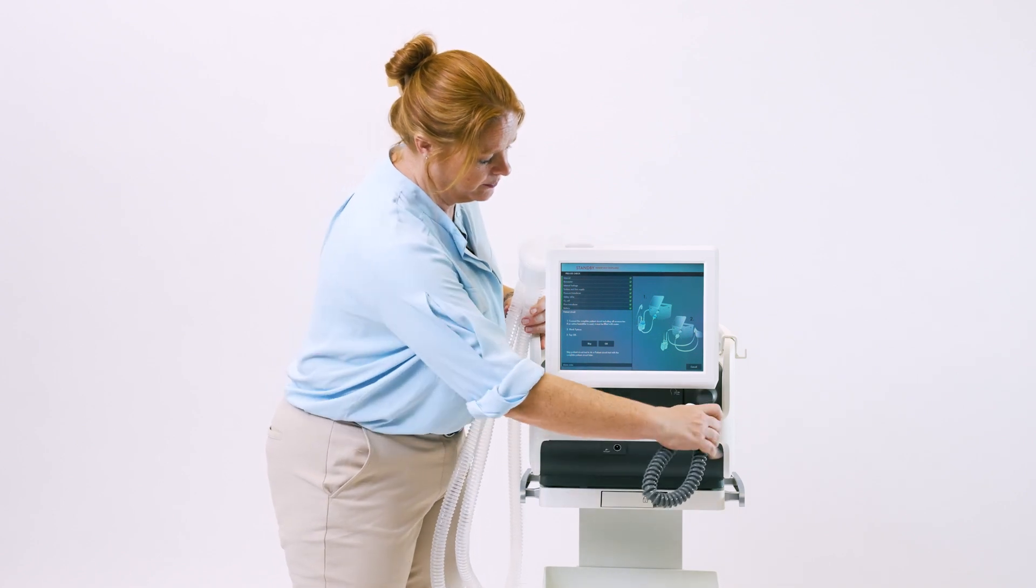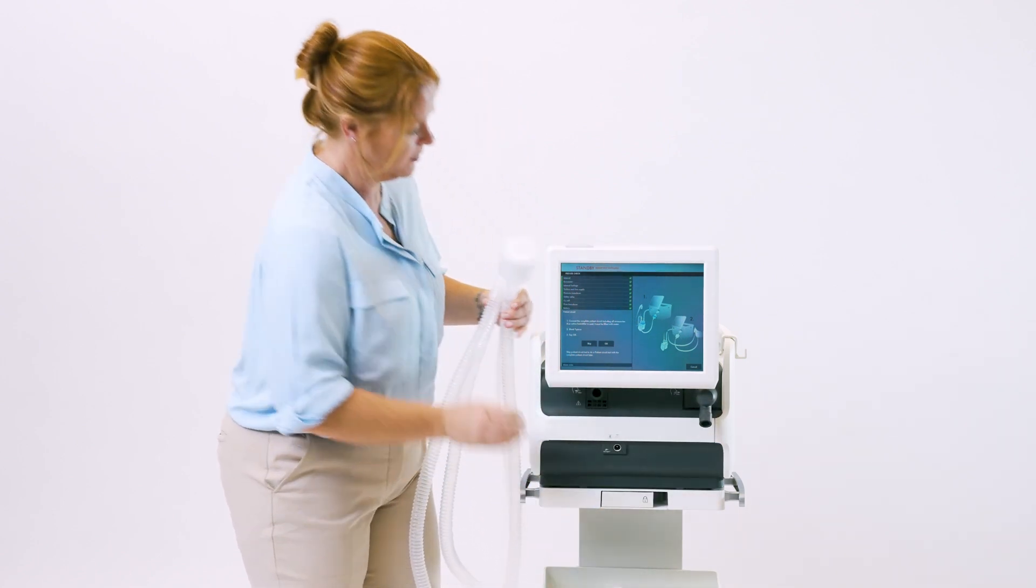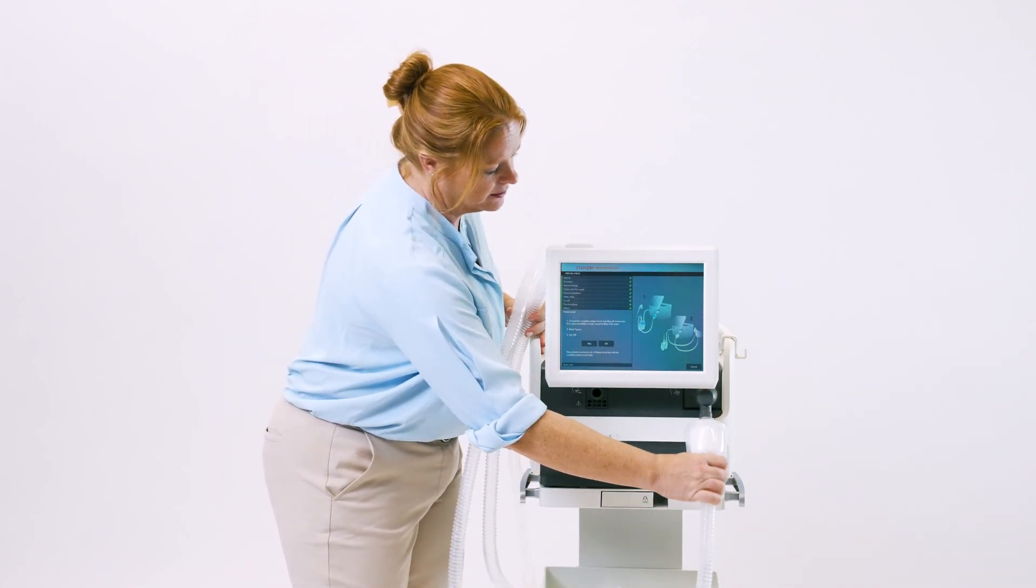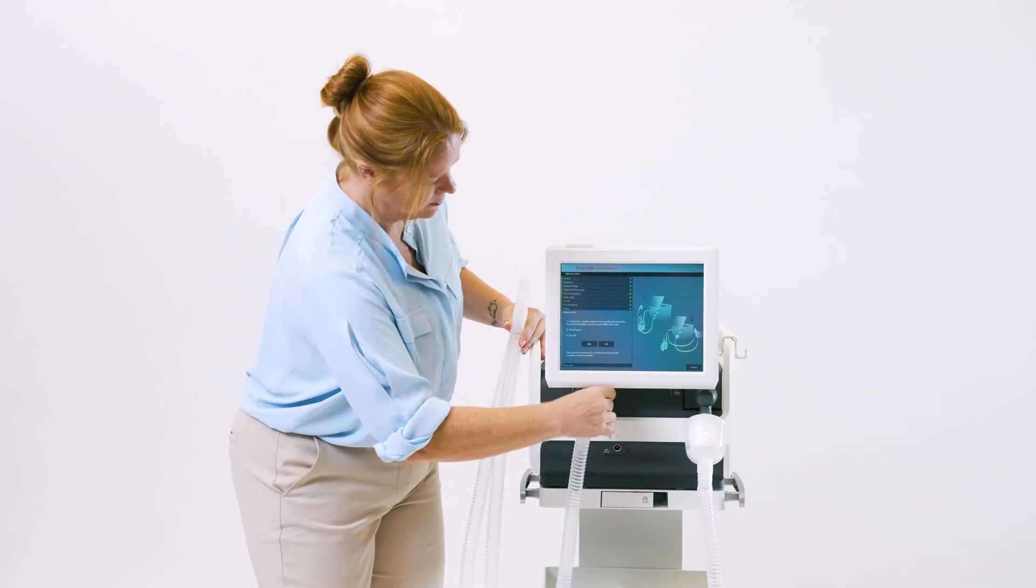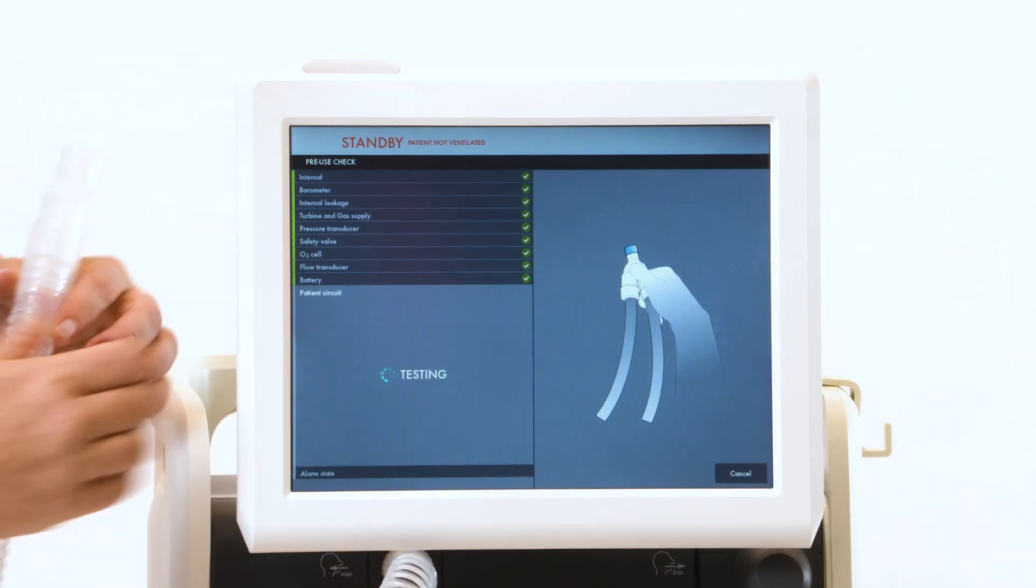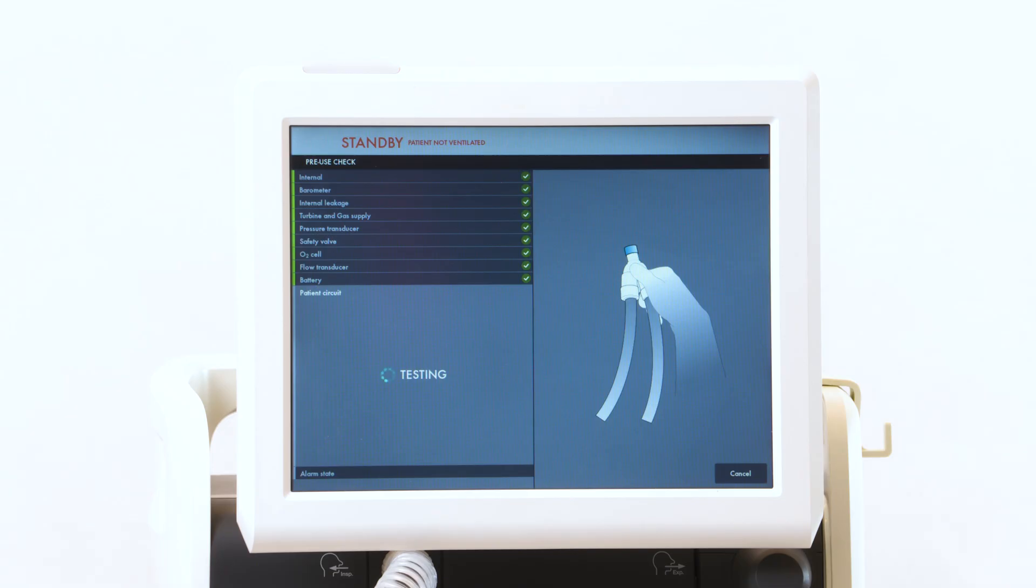Disconnect your test tube and connect your circuit. Then hit OK in order to start the calibration.